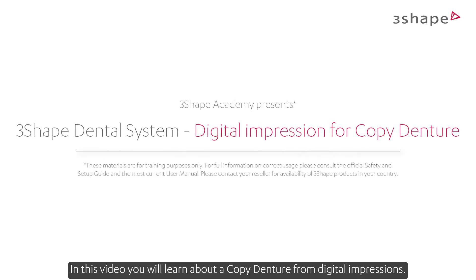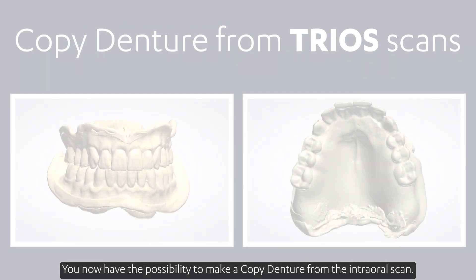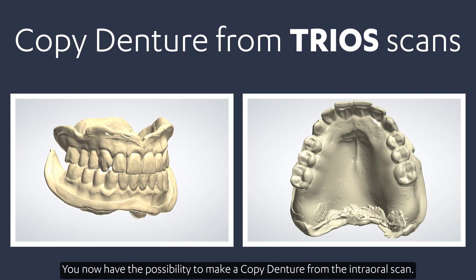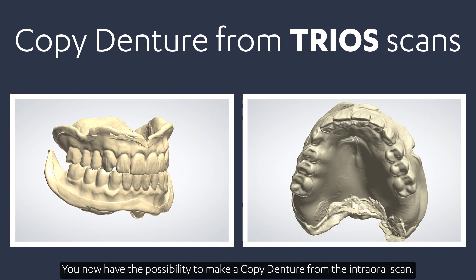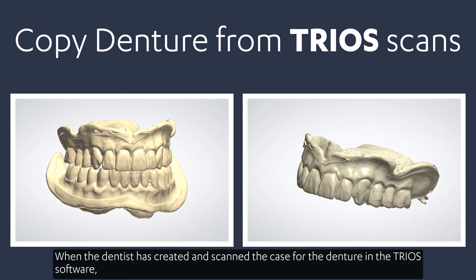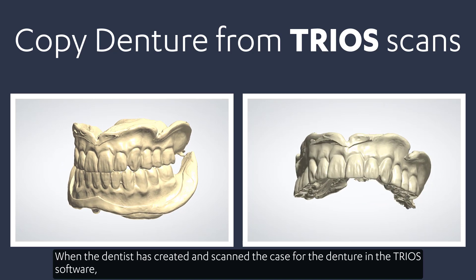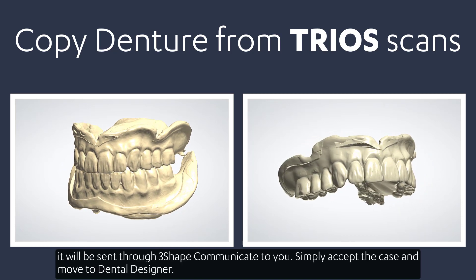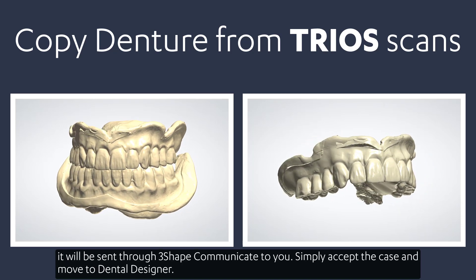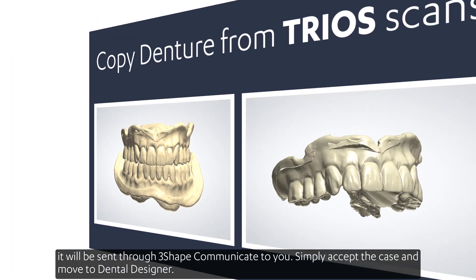In this video, you'll learn about a copy denture from Digital Impressions. You now have the possibility to make a copy denture from an intraoral scan. When the dentist has created and scanned the case for the denture in the Trios software, it will be sent through 3Shape Communicate to you. Simply accept the case and move to Dental Designer.